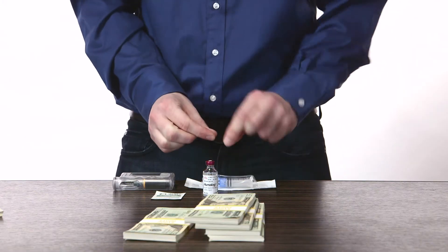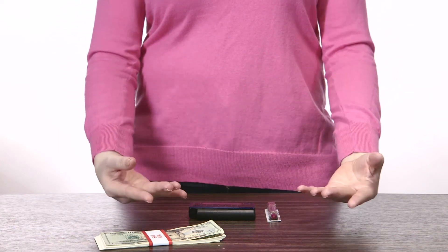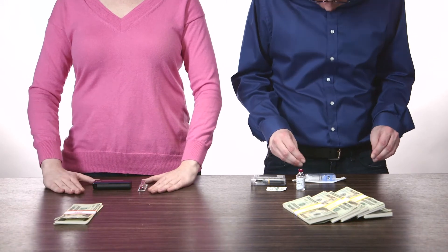Now this competition comes down to machine versus machine. It's pump-o-a-pump-o. Which pump has the faster reservoir prep? Ready? Snap? Go!